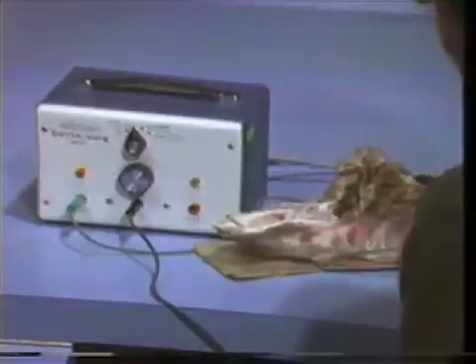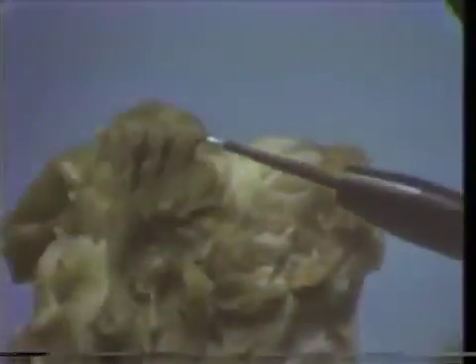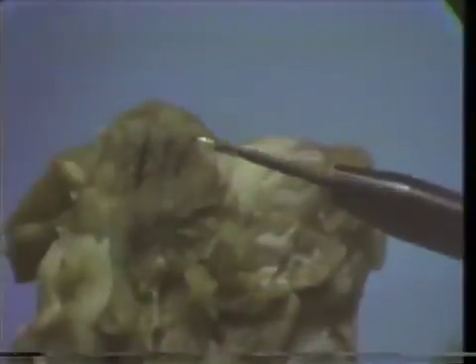In this case, the incision is narrower and there is less damage to the surrounding tissue. Here again, damage is further reduced because the speed was increased to prevent heating of the surrounding tissue.